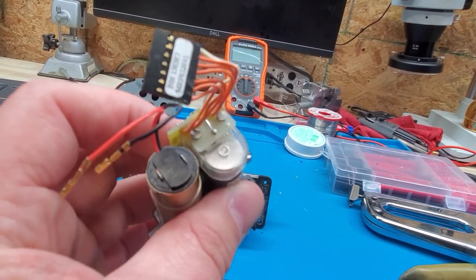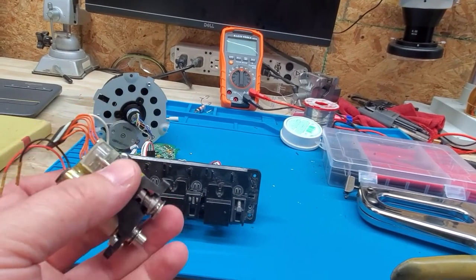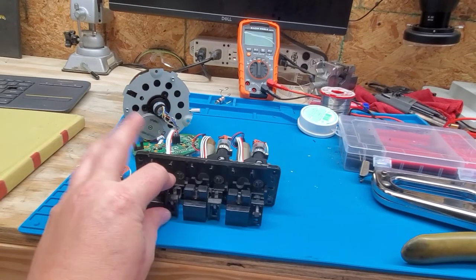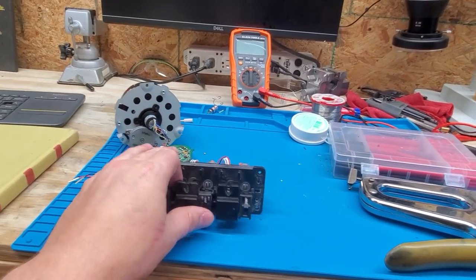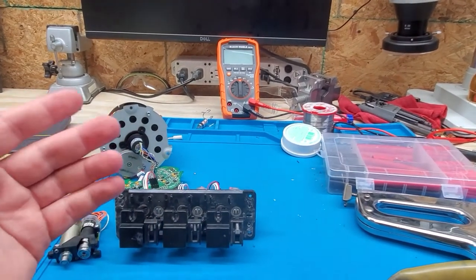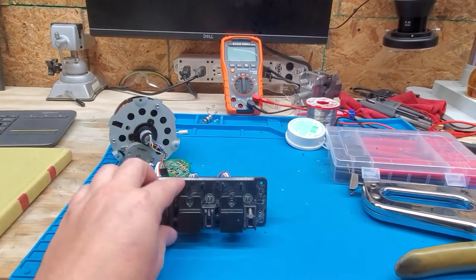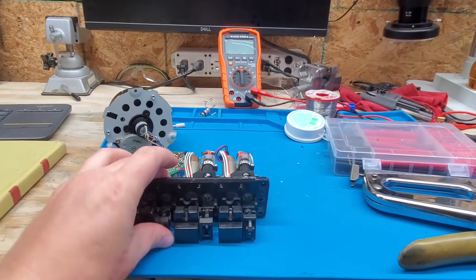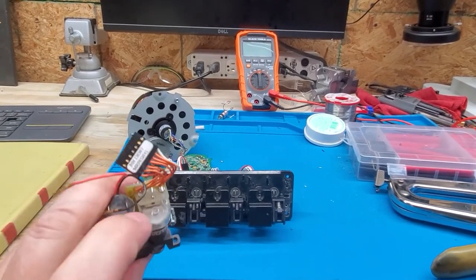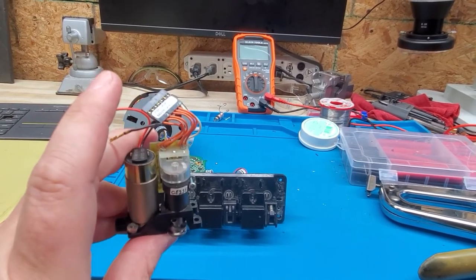See how they're equally spaced on one side? That tells it its rotational speed and how many times it's gone around. That actually tells the infusion pump not only how fast it's gone, but it will tell it if there's an occlusion, if there's a motor error, if the motor is not moving. That little guy right there will tell it how much it has infused based on how many revolutions it has made. There's a tiny little optical interrupter right there on that circuit card at the very end.